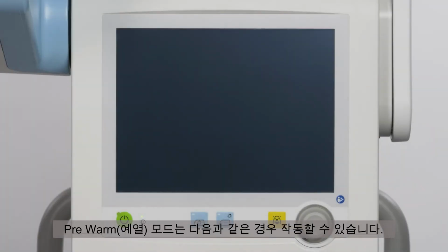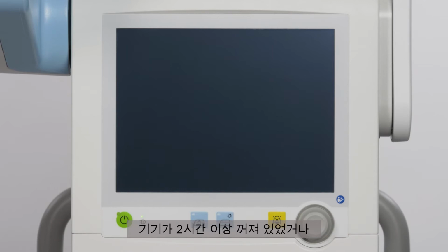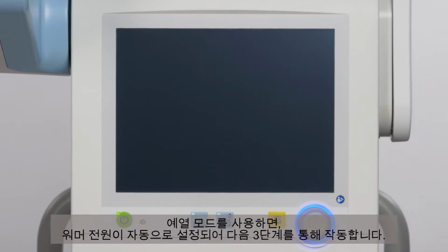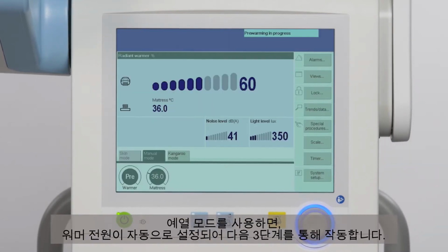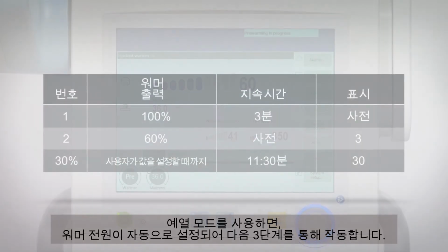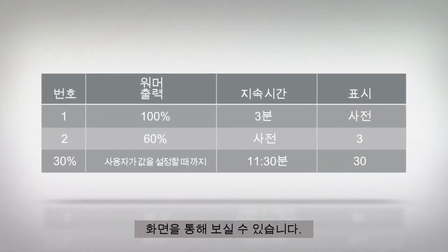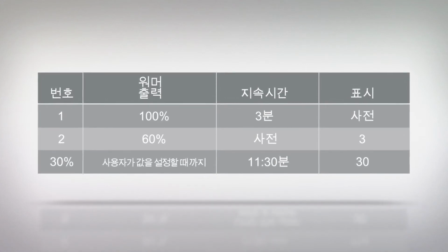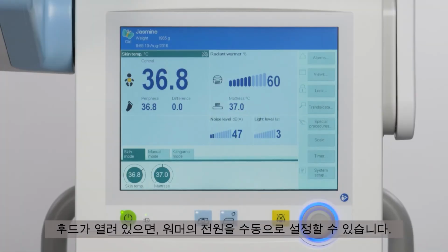The pre-warm mode can be activated when either the device has been switched off for longer than 2 hours, or the device is switched on with the hood open. When using the pre-warm mode, the radiant warmer power will automatically set and run through the following 3 phases, which you can see on your screen. When the hood is open, you can set the radiant warmer power manually.